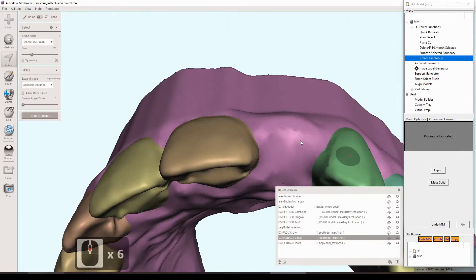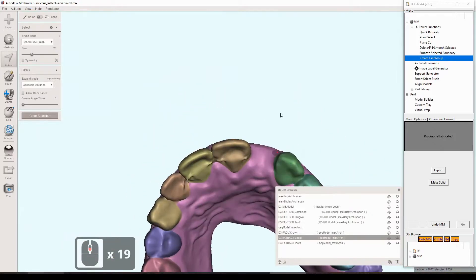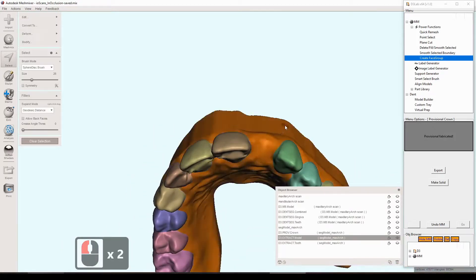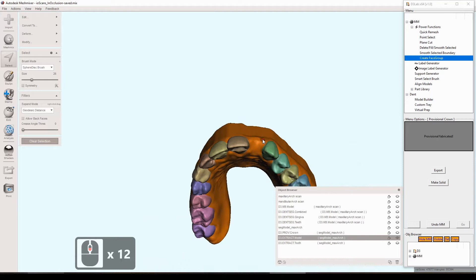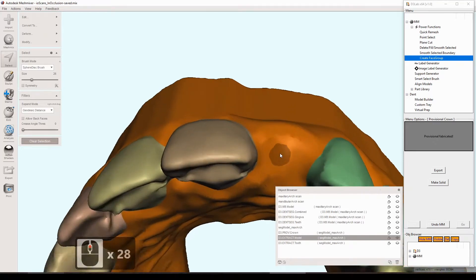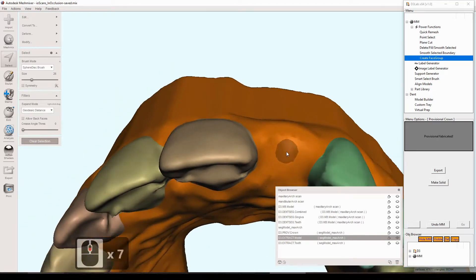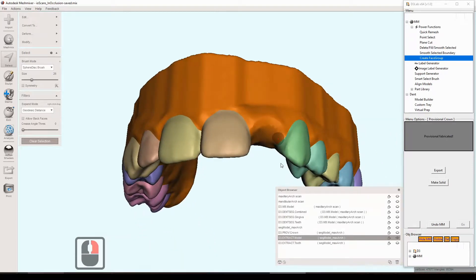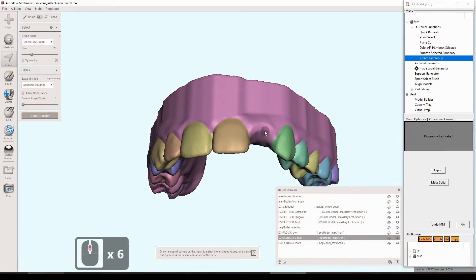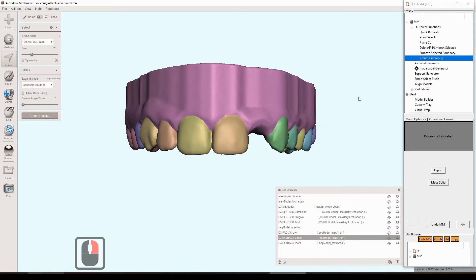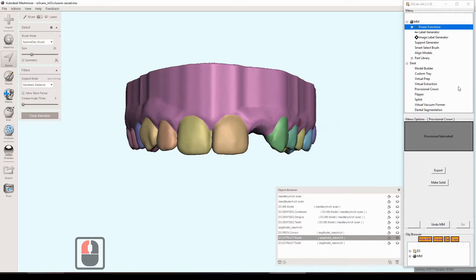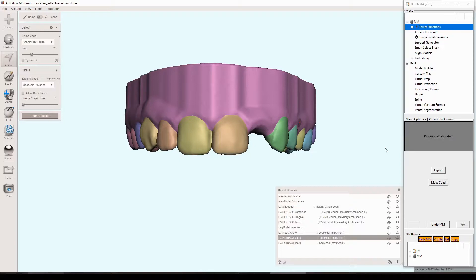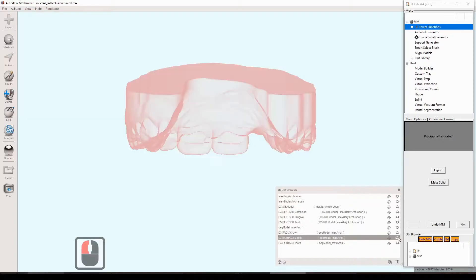And now we're basically back to where we started. Just minus one tooth. Segmentation's restored. And just checking here. That should be the gingiva. Looks pretty good. And I think we are good to go. So that's the virtual extraction tool there. Again, it tries to really aim to maintain the adjacent tooth anatomy and also replicate a slight healed socket, kind of right in the most center point there.